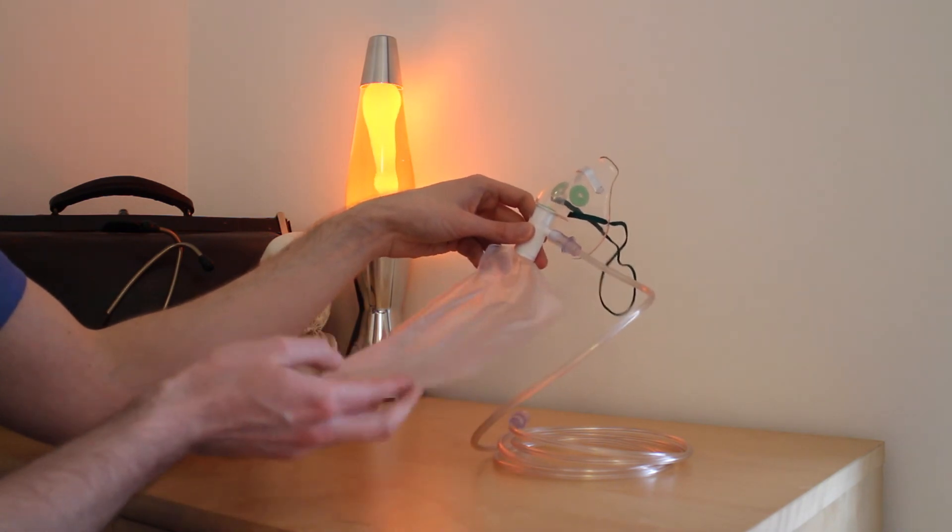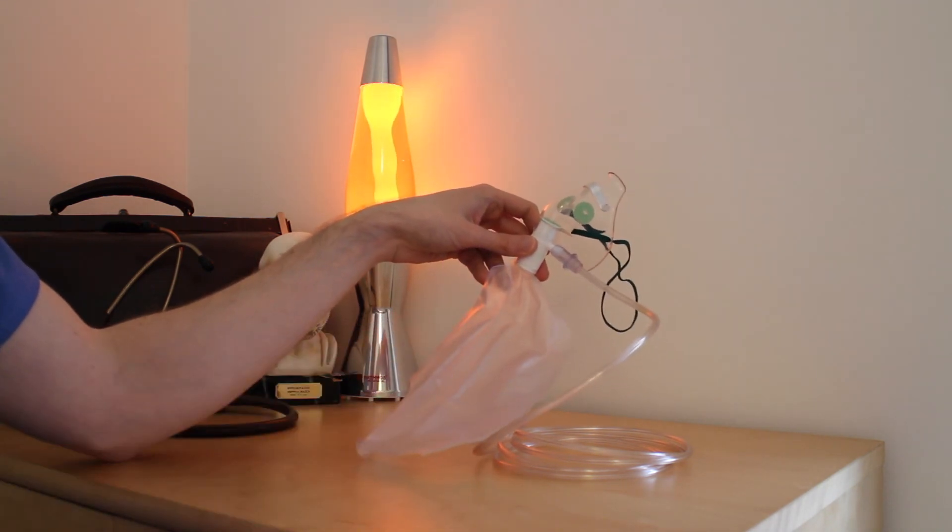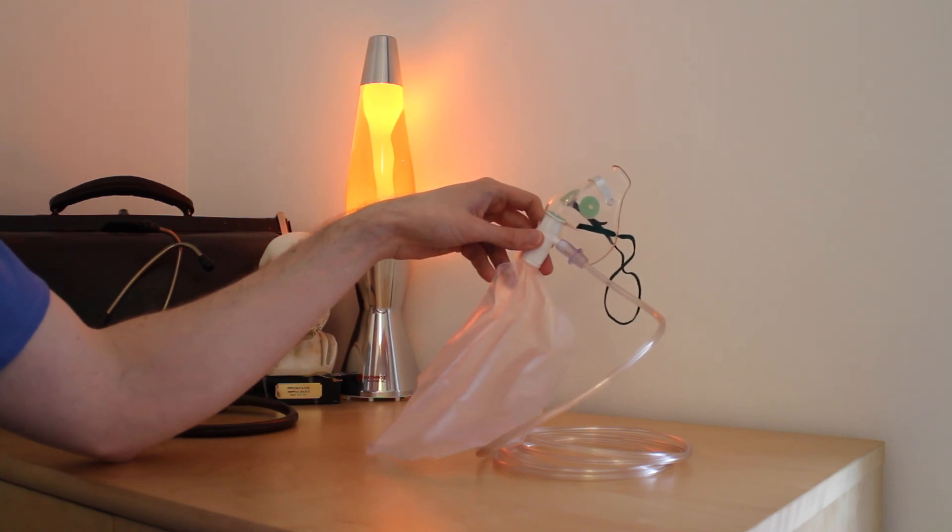In summary, this is a high flow oxygen mask with a reservoir. It is used to deliver a high concentration of oxygen to a patient who may have respiratory compromise or hypoxia.